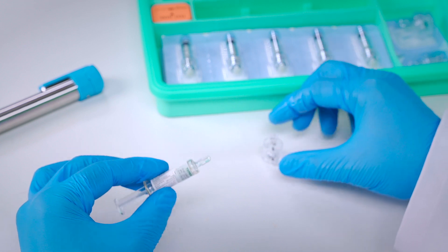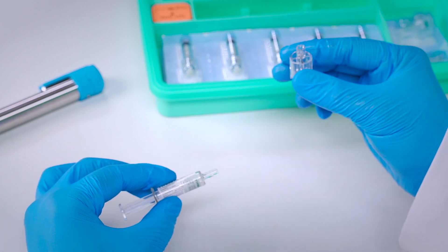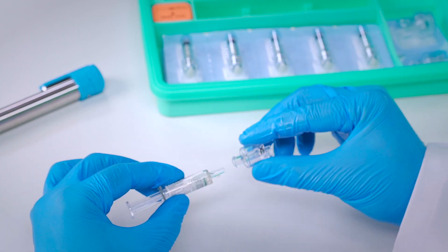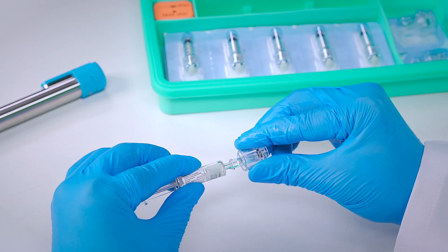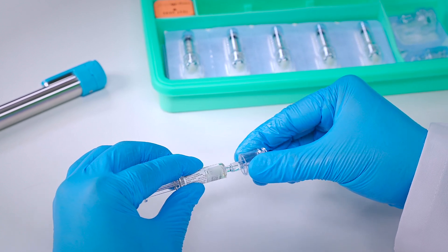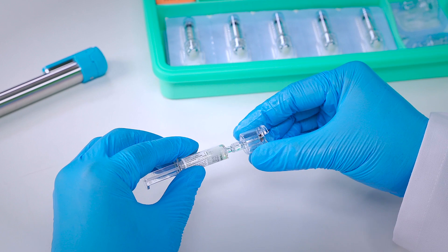Attach the Integri Medical pre-filled syringe adapter by twisting it onto the tip of the medicinal pre-filled syringe. Ensure the connection is secure and tight.